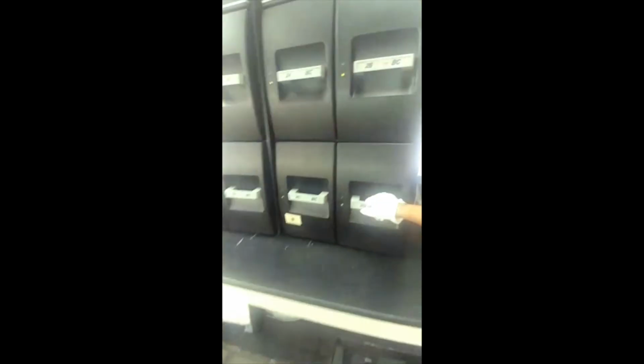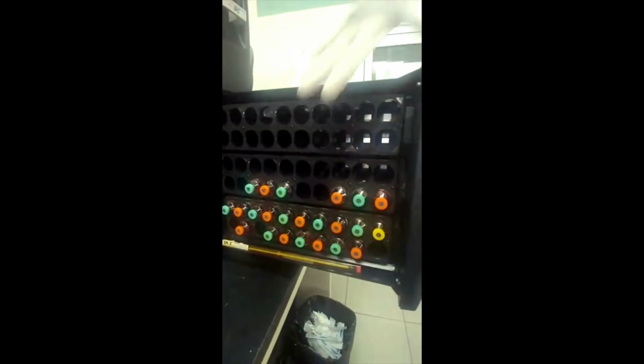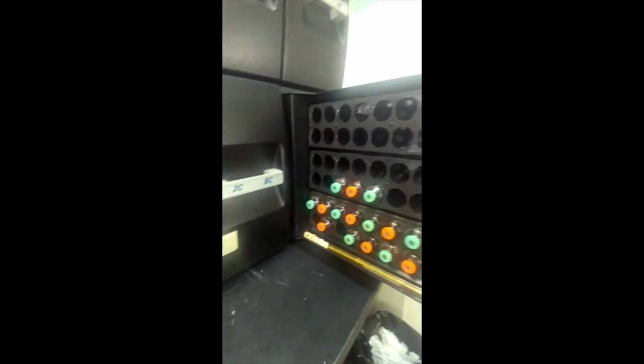So Miss, can we see inside there? Can you open one of these? Any one of these? Okay. So this is the incubator. It's really like a drawer, and it's at the right temperature and giving the right sort of atmosphere. Each well is for each bottle, okay? And it's going to be incubated, and we'll talk about in the lab how if there is growth, there's CO2 generated that changes the reflectance at the bottom of the bottle. It changes the appearance here, and so we get a reading. The machine is able to read it, and on the screen here will tell us if it's positive and which drawer is positive, and then we can go on.